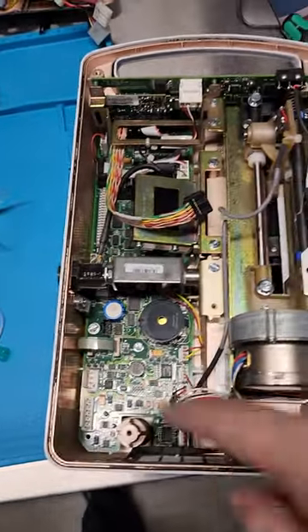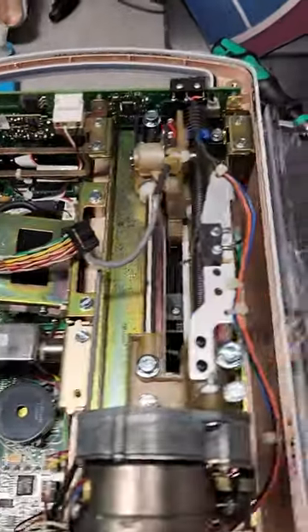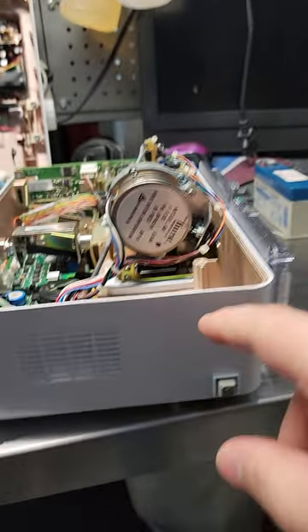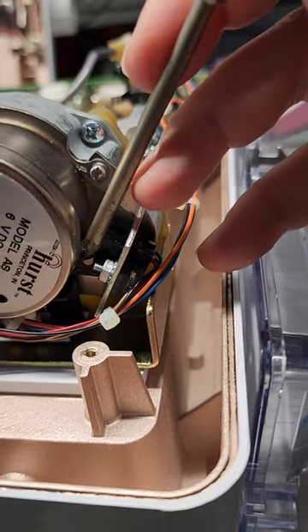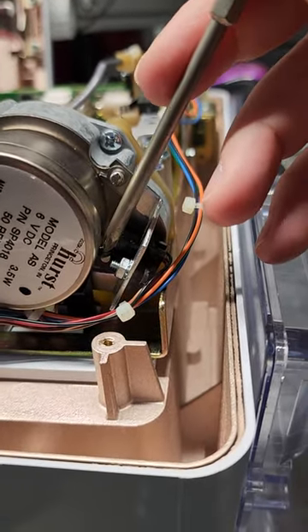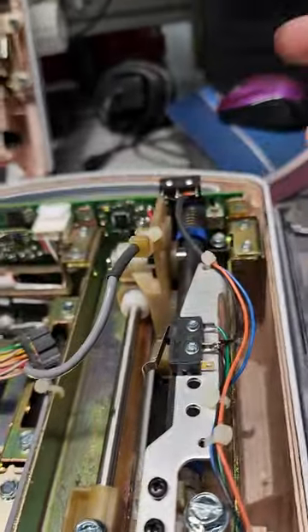There is one super long board that goes top to bottom. Right here you can see the PCA lock, so you can lock it out and open the door by pressing on this guy which is the release. This is your drive motor. Underneath here we have a micro switch — that one is for the plunger detect. Right here I have an optical interrupter surrounding the gear reduction shaft for the worm drive. It's a half-moon shape, so as it rotates it allows the light to pass, counts the revolutions, and that's how it knows how far it's gone.